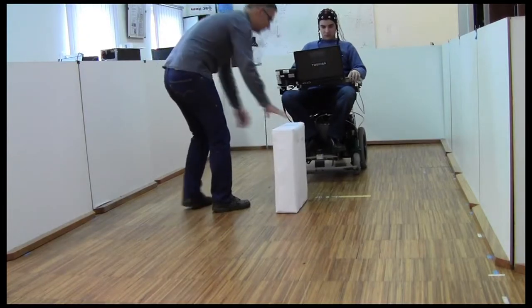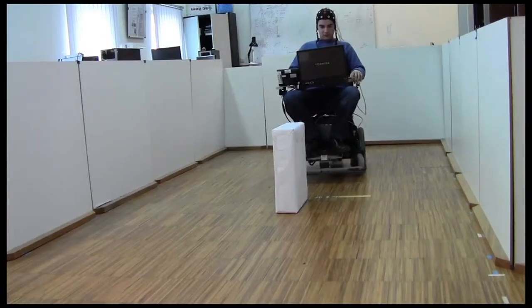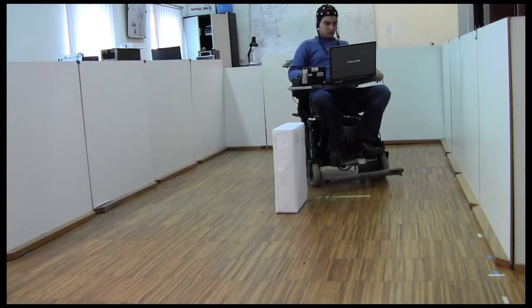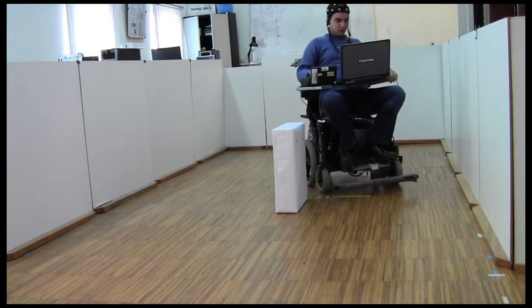In a multiple direction situation, caused by new obstacles in the environment, the collaborative controller waits for the user BCI command. The final steering is determined based on the information provided by machine and user agents using a matching intent algorithm.